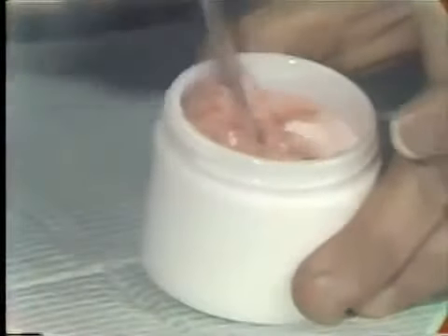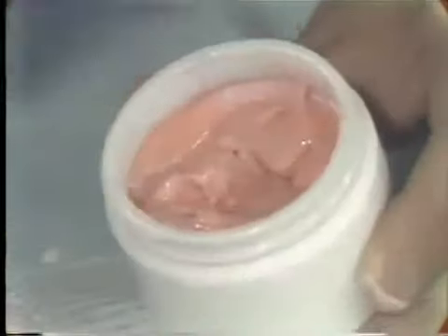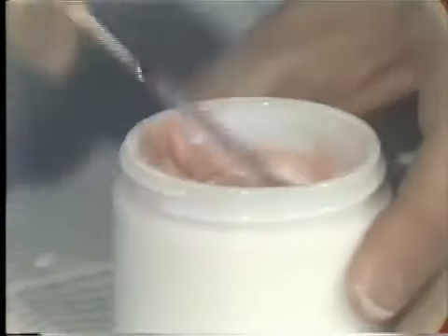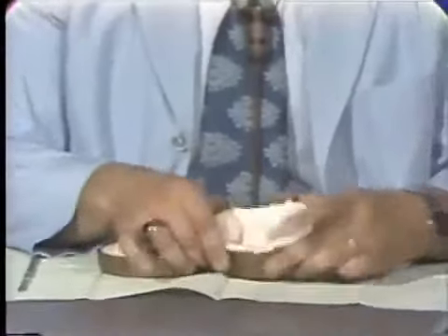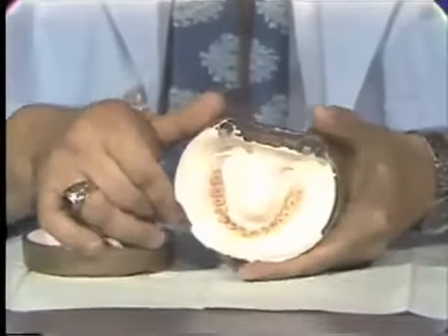The mix is dry. It will not be very fluid as some of the auto-polymerizing resin. Once you feel that the polymer is adequately wetted by the monomer, as you see here, we can place the top on the mixing jar and let this sit for upwards of 45 minutes. Lucitone will retain its packability for a considerable length of time, and so I will set this to the side.